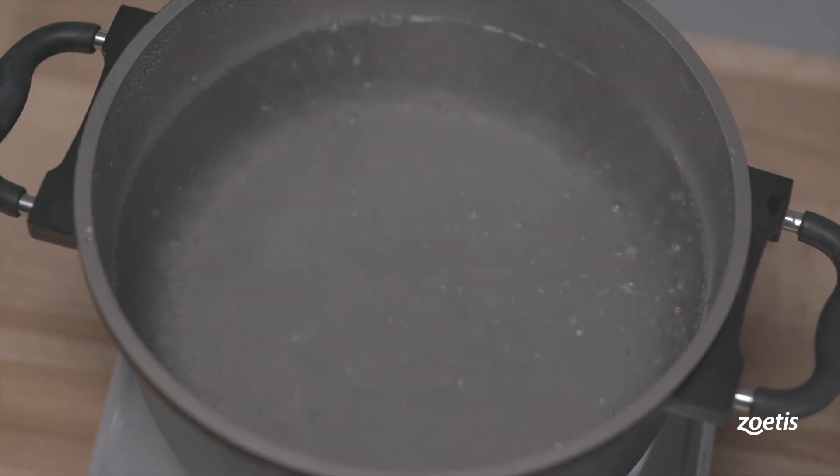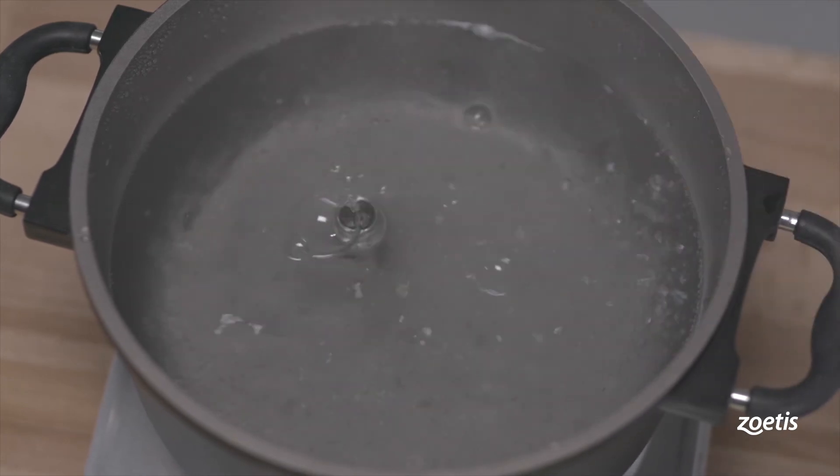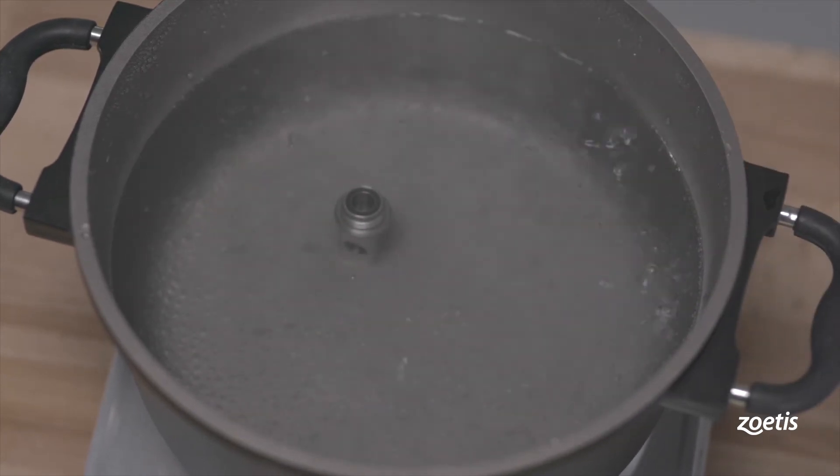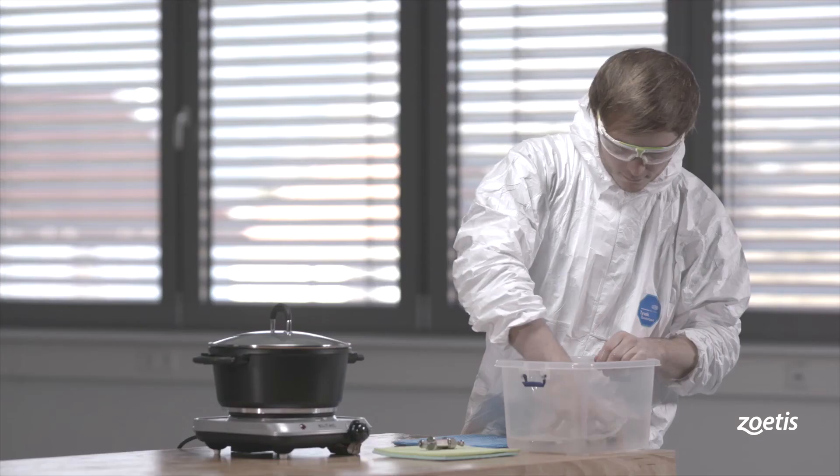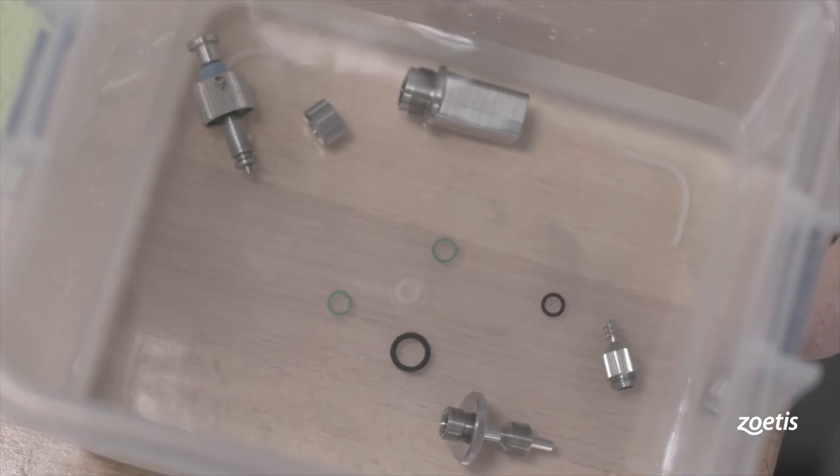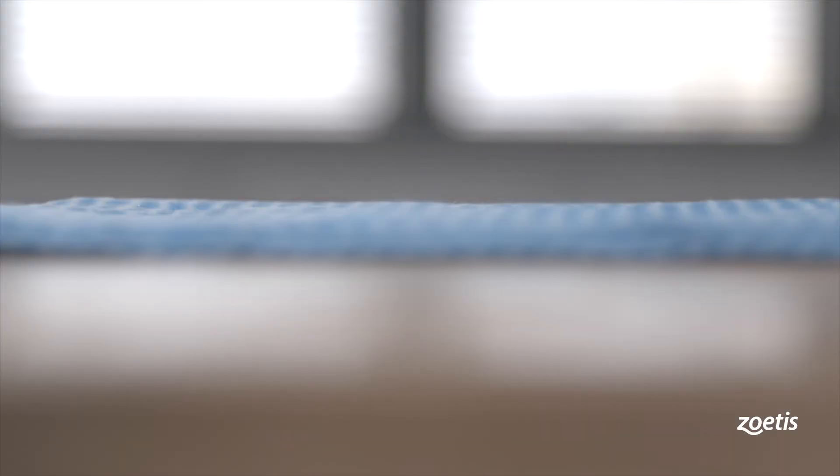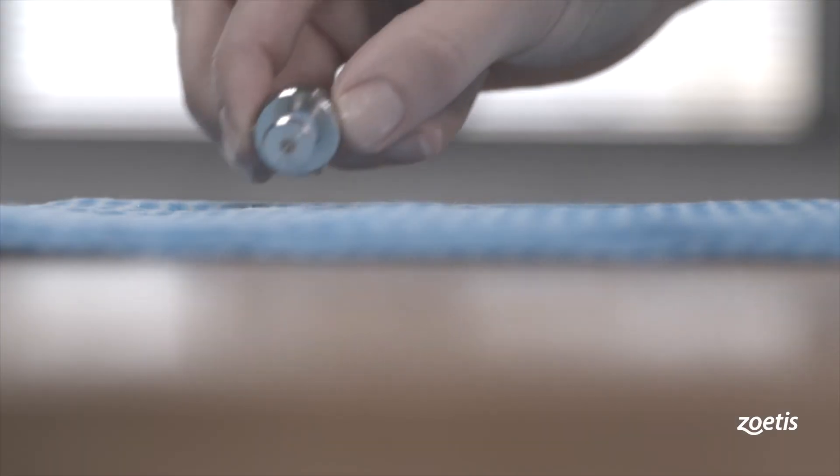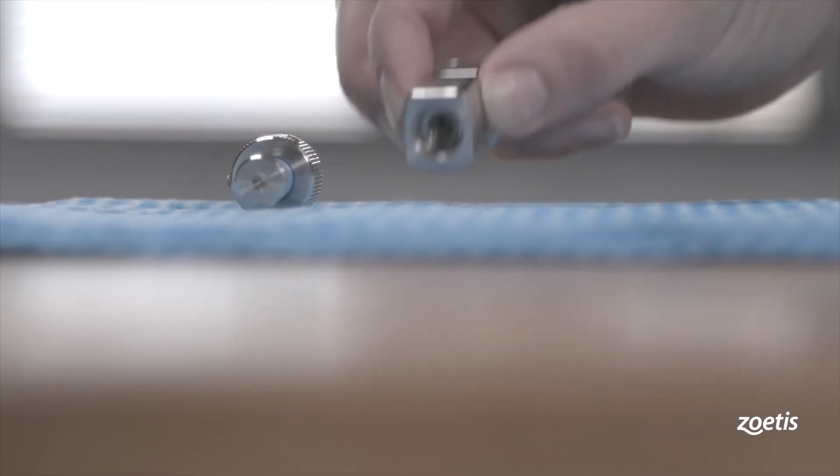Put all parts of the disassembled syringe in a pot. Fill the pot with water and boil all components in this pot for 20 minutes. After boiling, rinse the syringe with distilled water. Dry all parts with compressed air or allow them to air dry completely.